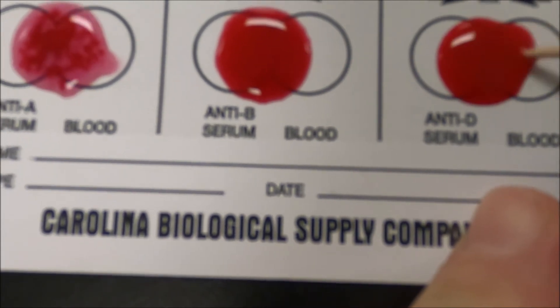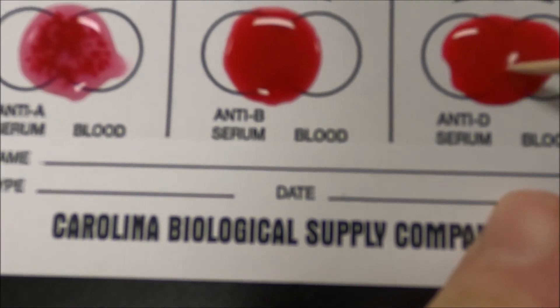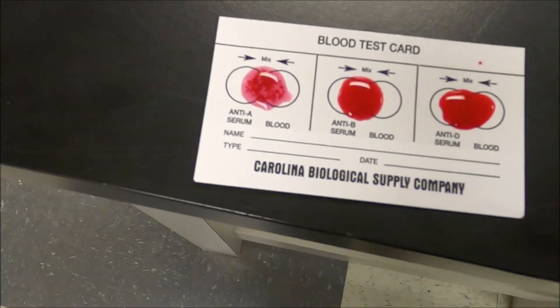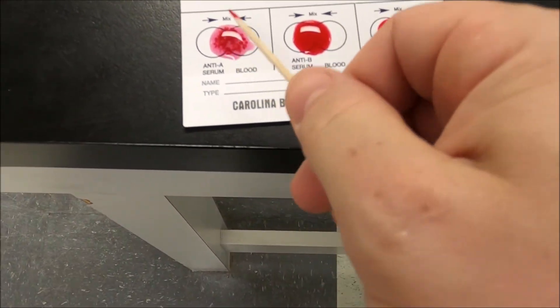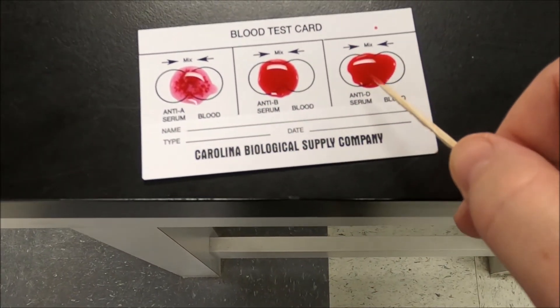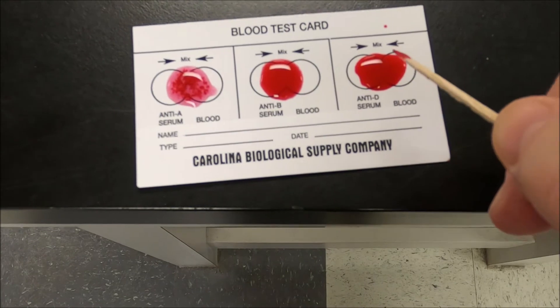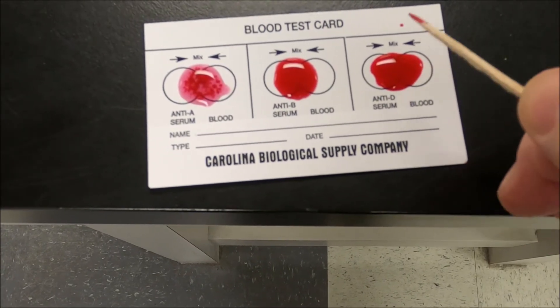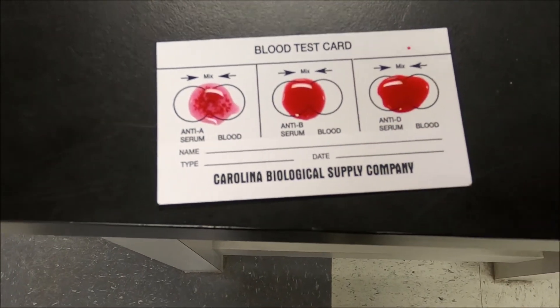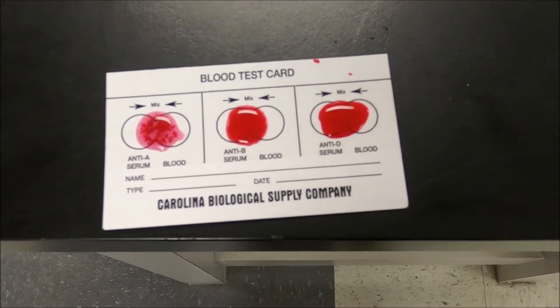And there is nothing happening here at all — good. So this person here would be type A negative. If this had agglutinated, that would be a positive rhesus factor — type A positive. But as it sits, A negative.